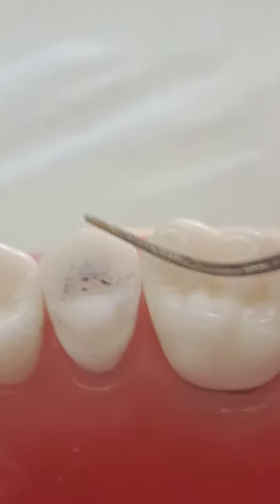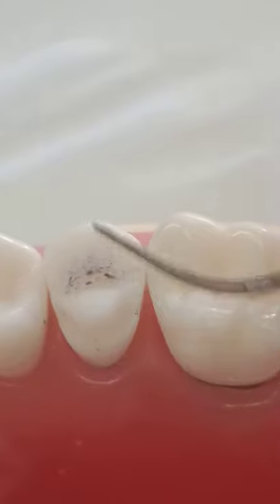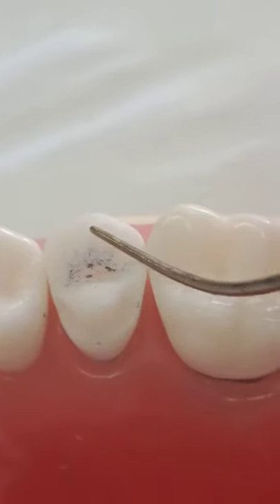The amount of dentine that remained here is sufficient. This is the flush design; this is the overlay design. With the onlay flush design, you have reduced enough.